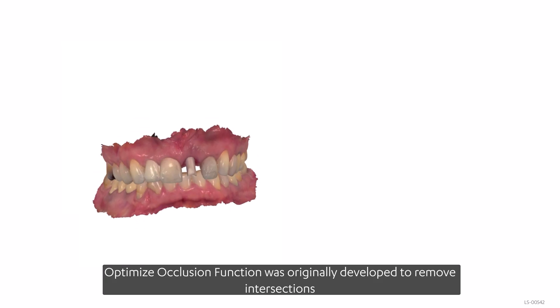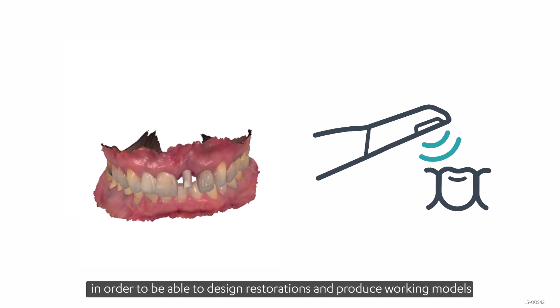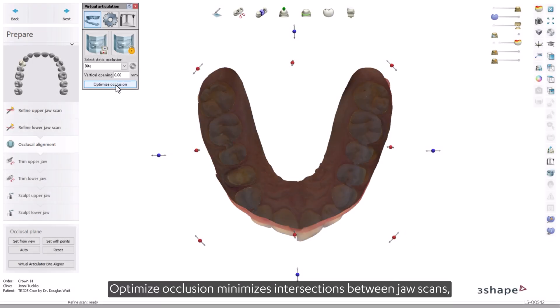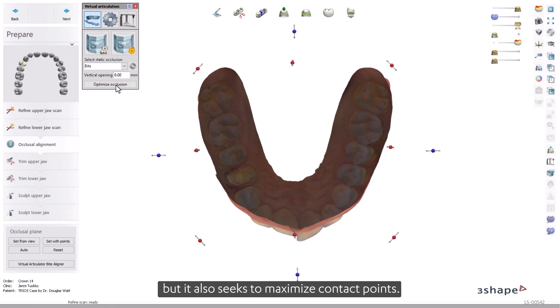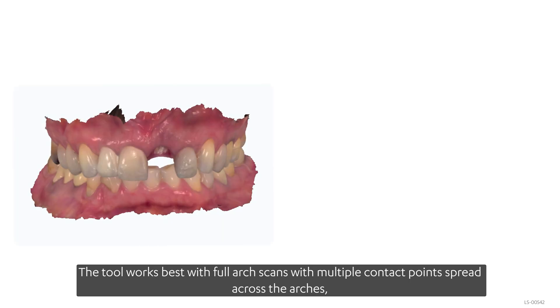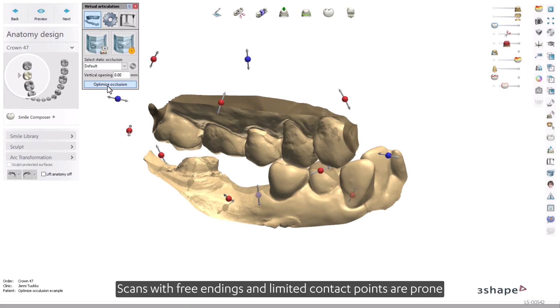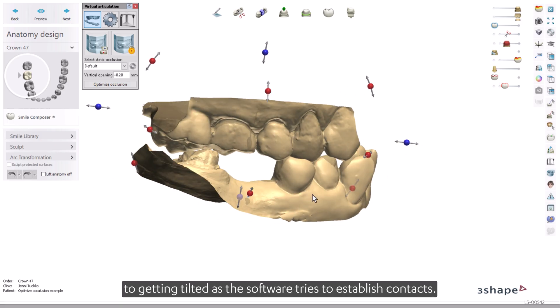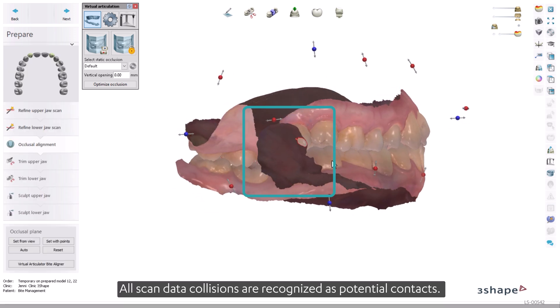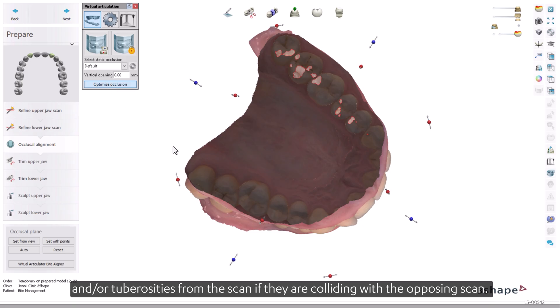The Optimize Occlusion function was originally developed to remove intersections between upper and lower scans, especially in IOS cases, in order to be able to design restorations and produce working models with passive contact points. Optimize Occlusion minimizes intersections between jaw scans, but it also seeks to maximize contact points. The tool works best with full arch scans with multiple contact points spread across the arches, but it can also be used for quadrants. Scans with free endings and limited contact points are prone to getting tilted as the software tries to establish contacts. All scan data collisions are recognized as potential contacts, which is why it is recommended to always trim retromolar pads and/or tuberosities from the scan if they are colliding with the opposing scan.